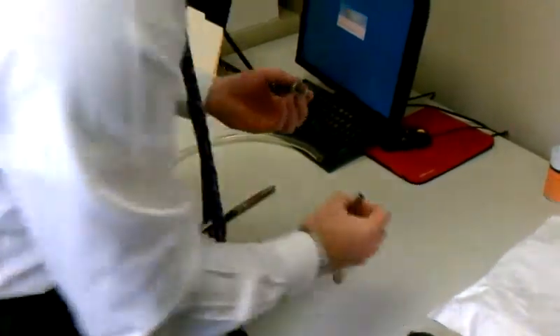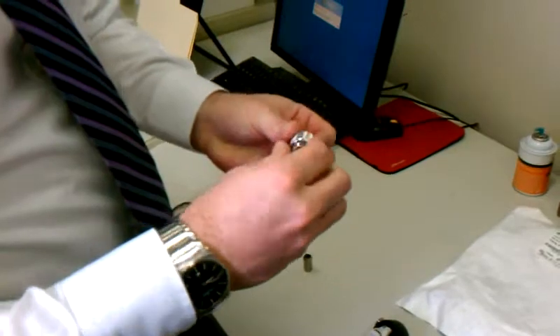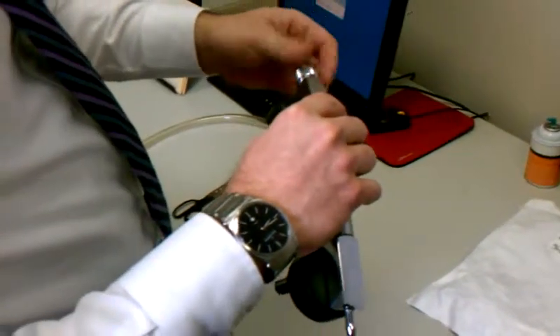We also sent, and it comes in the package, a 3/8-inch nipple. You're simply going to put that 3/8-inch nipple on that way, and then just put it back onto the reusable bottle assembly.